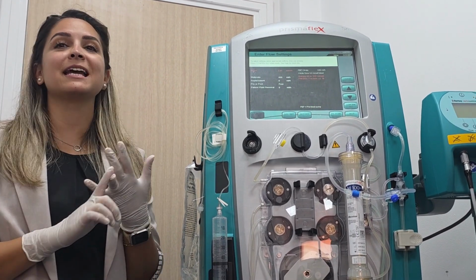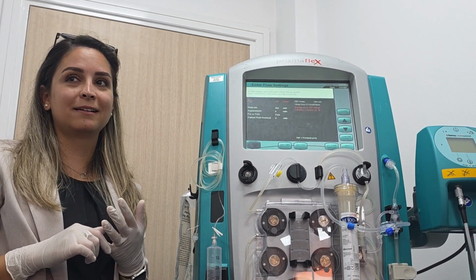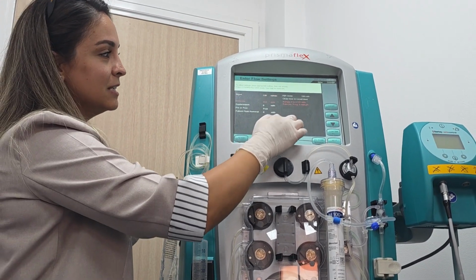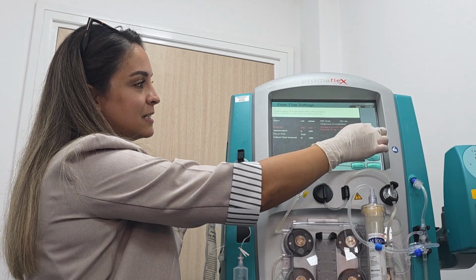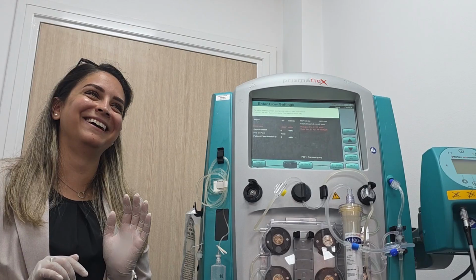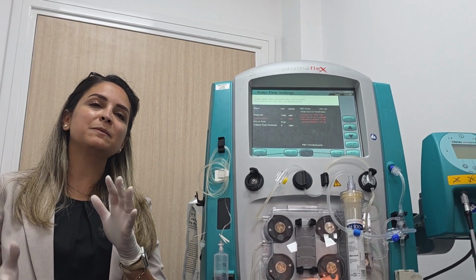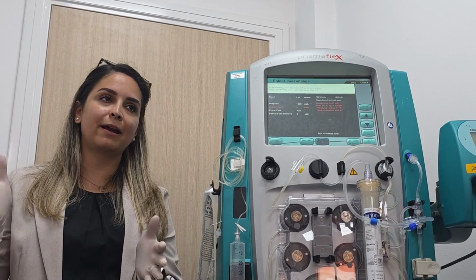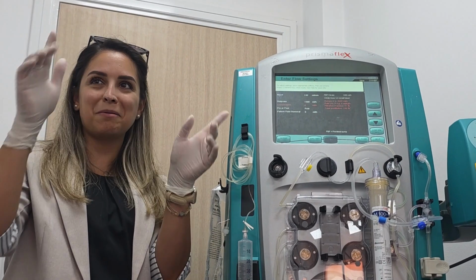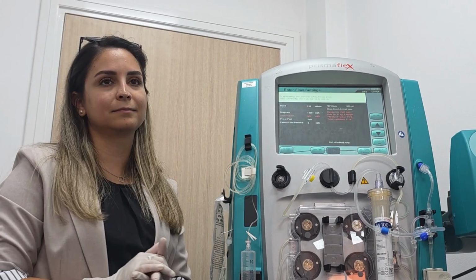Dialysate. So, 130 multiplied by 10, 1,300. I'm not remembering, I will write it down. The next one is replacement. Replacement is between 500 to 700. This is the range. So you can put 500. If you don't remember it, just remember that: 500. Don't forget to put a post.